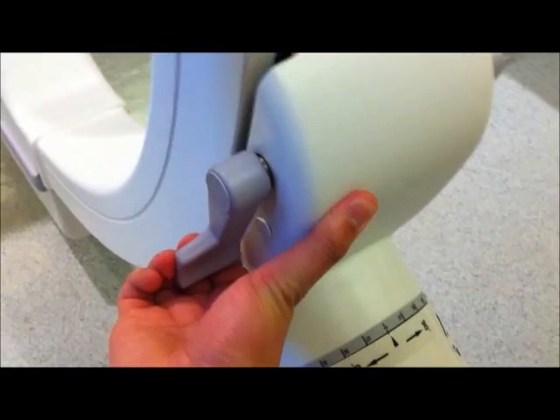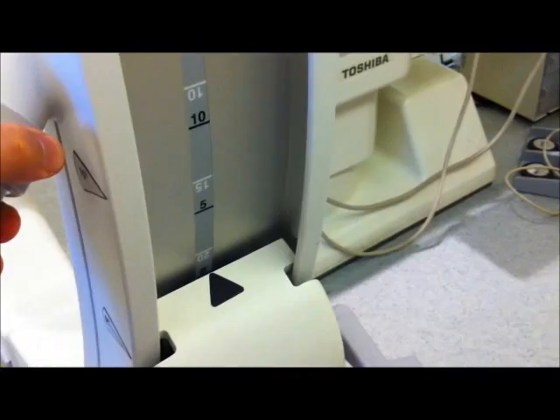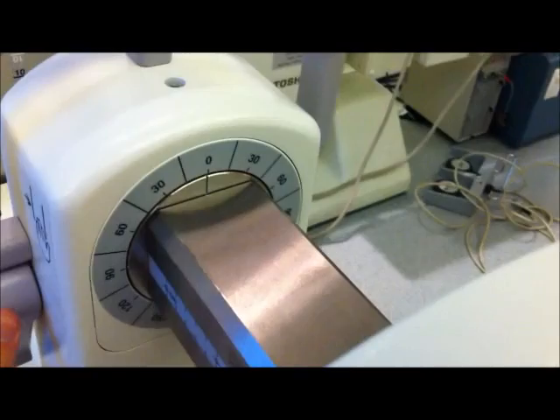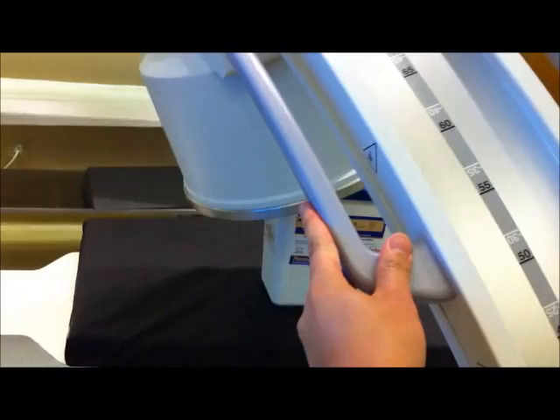This lock on the C-Arm, closest to the large C, is used to do angulation — basically obliques or laterals. Once it's unlocked, you can grab the handlebar and rotate it into a lateral position. Watch out for hitting the bottom of the table. There's also a tilt function here: by unlocking this lock, you can grab the C of the C-Arm and push it down for a caudal tilt or the other way for a cranial tilt.